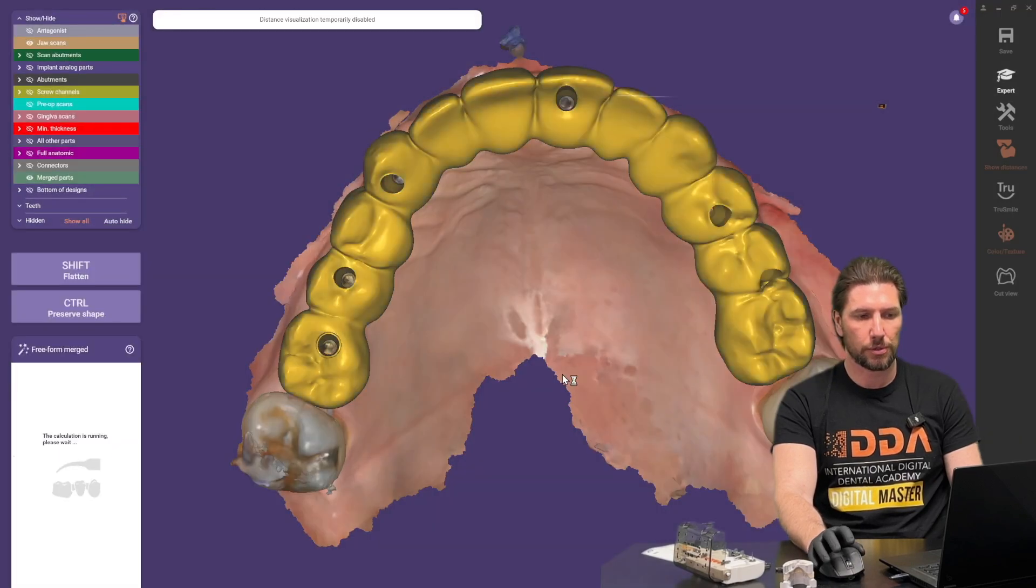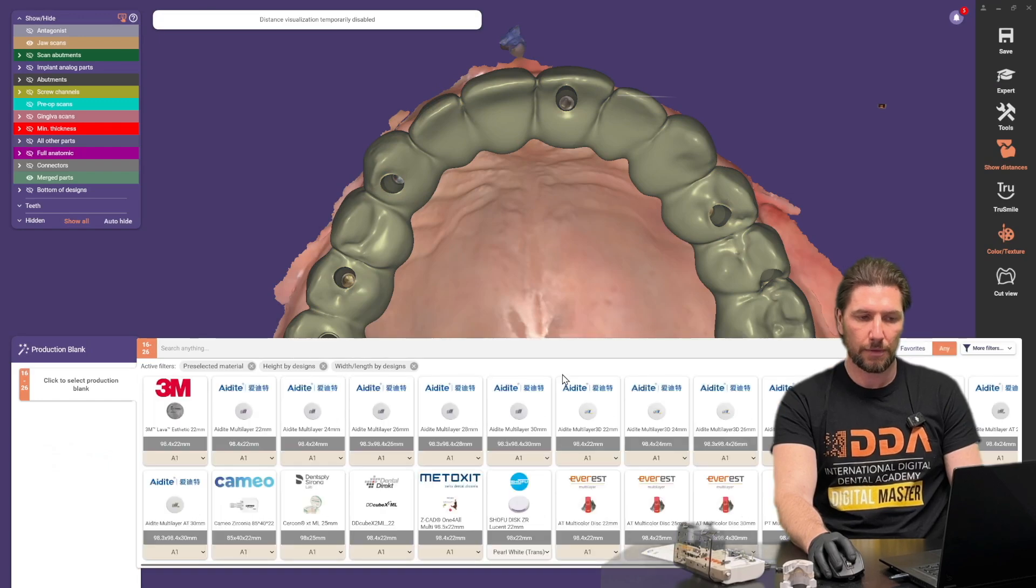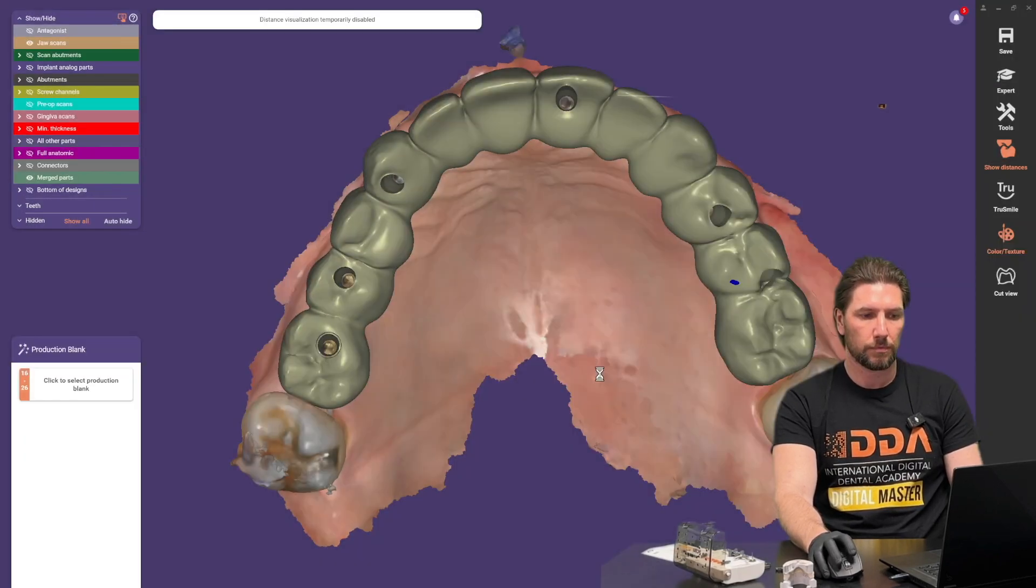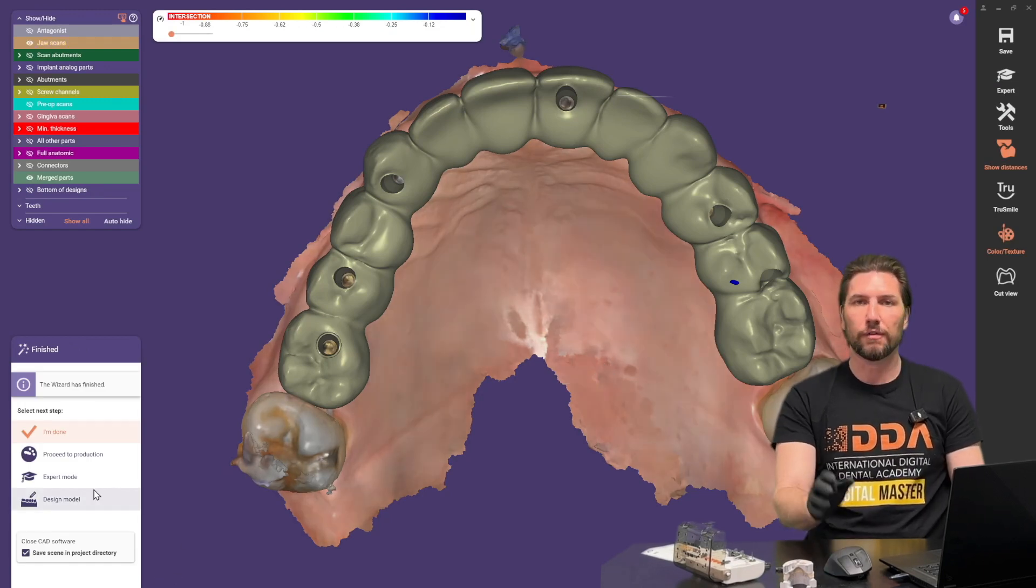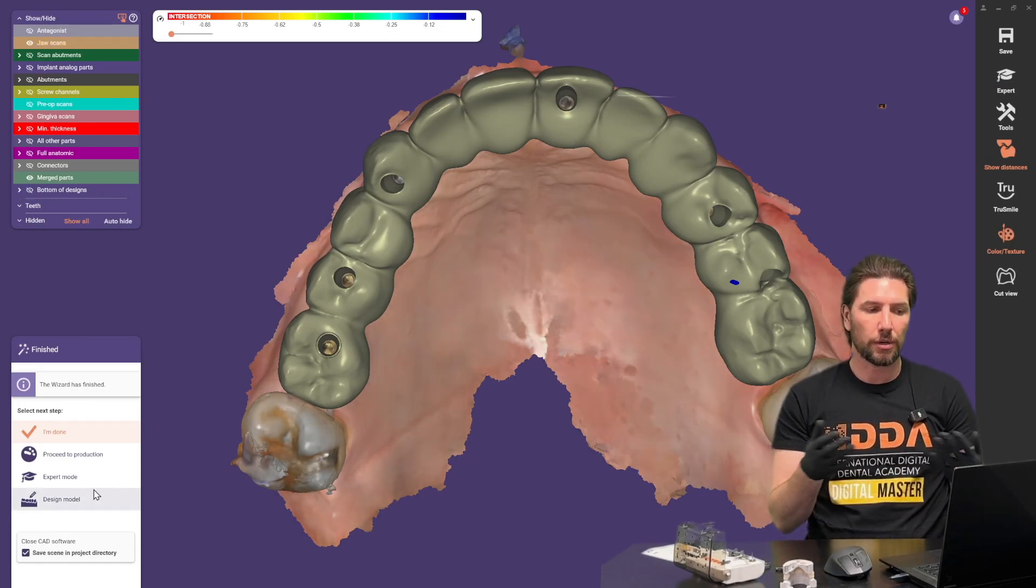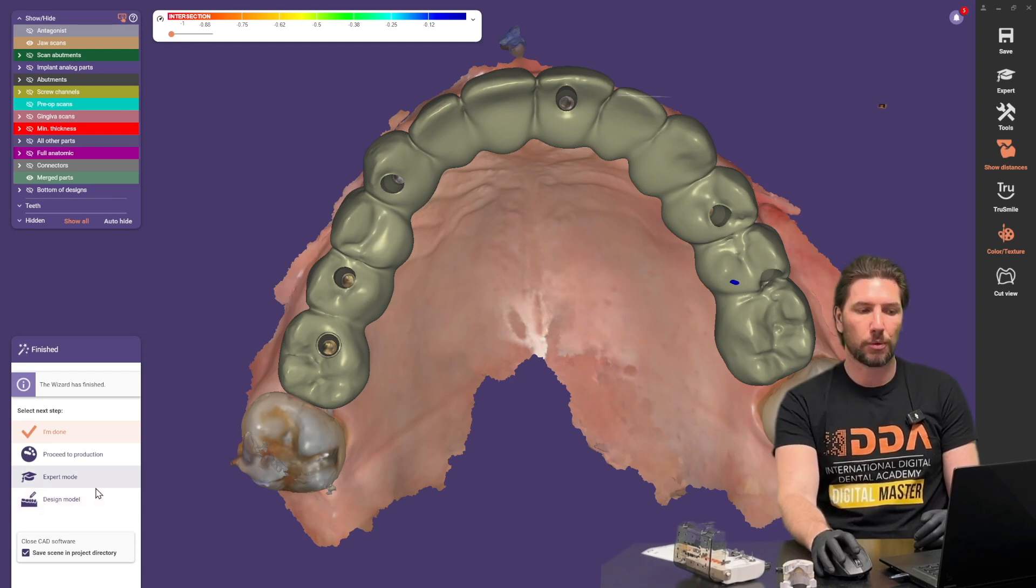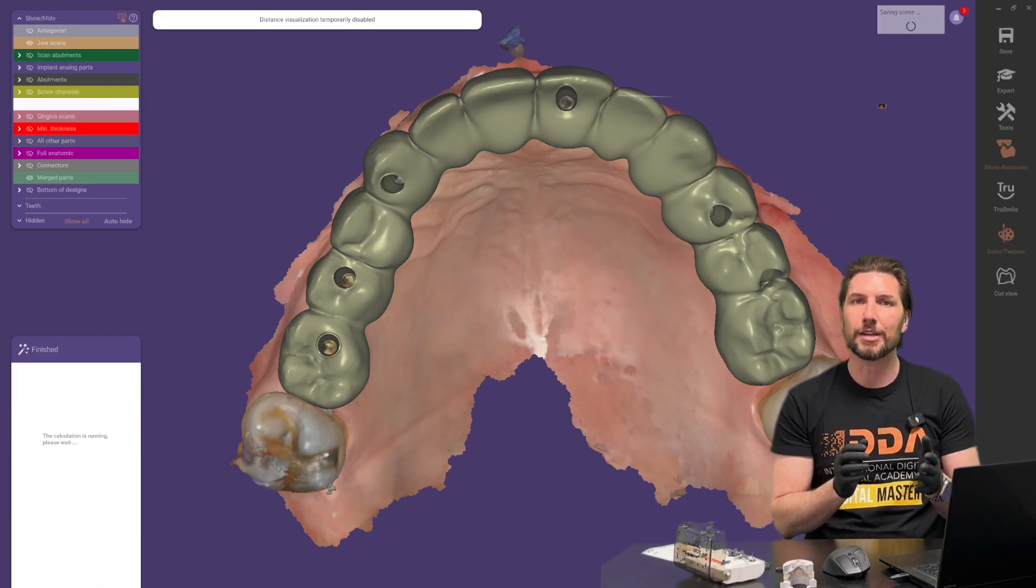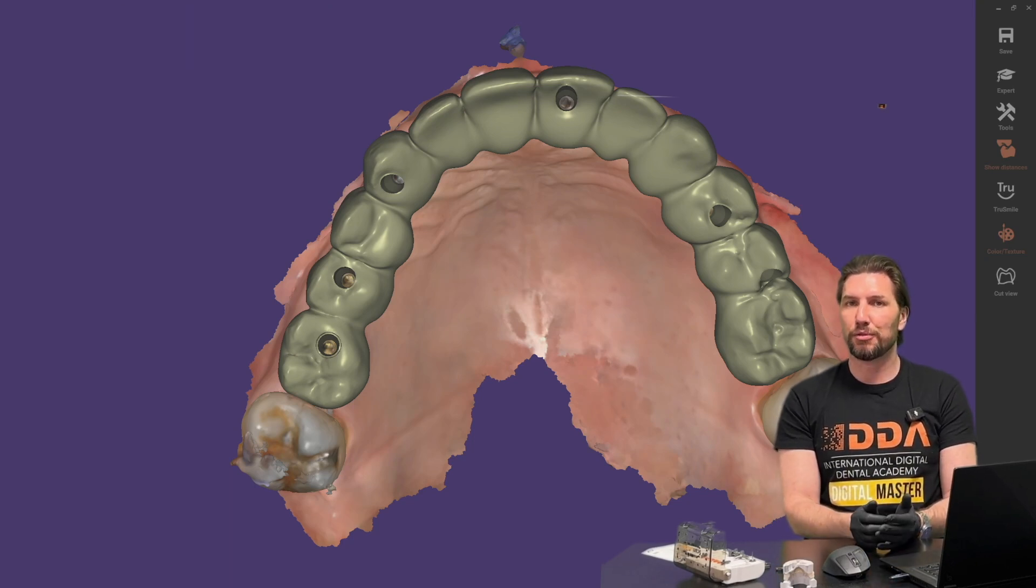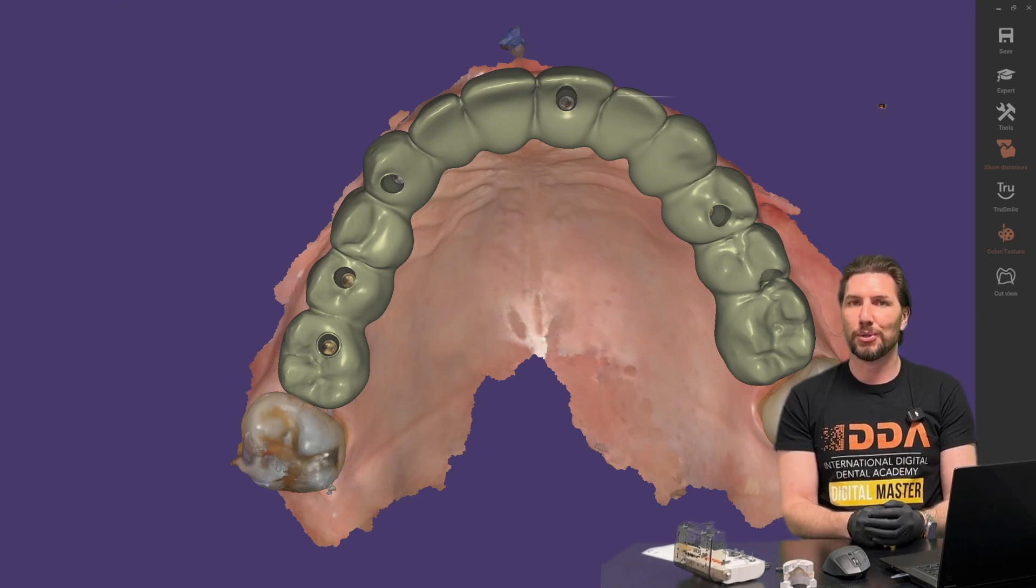Saving the modifications yes and that's as good. Once we're done we can either go forward and design a model or we can export that and be ready to go and that is that tutorial done for a quick and easy same day design feed to print off on whatever 3D printer that you're using.